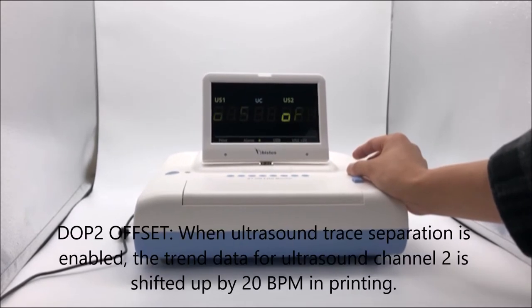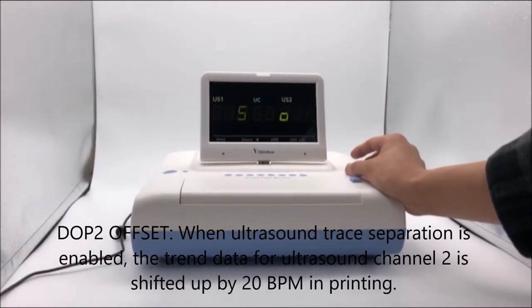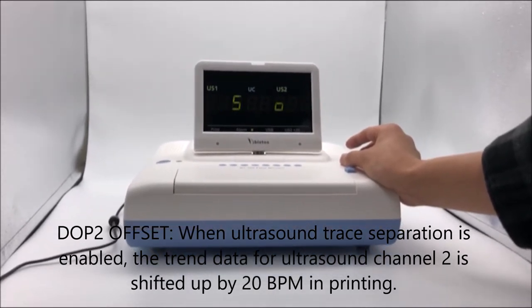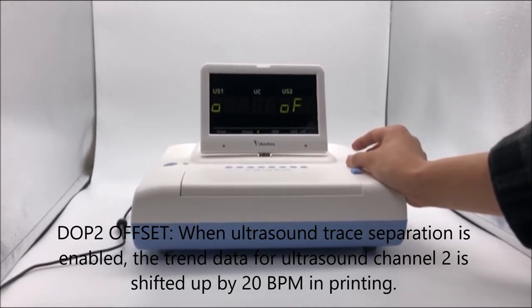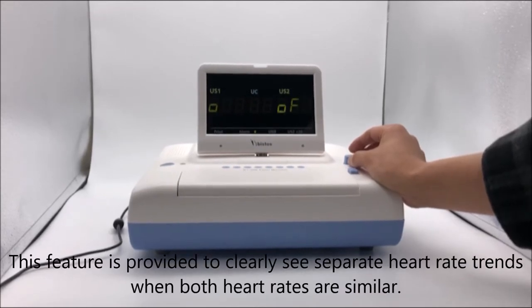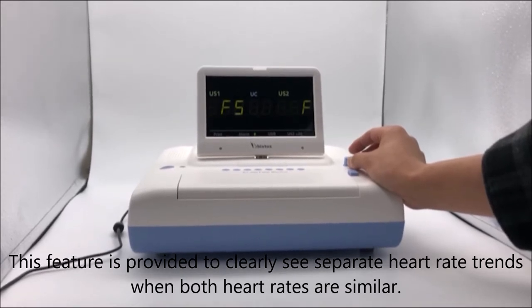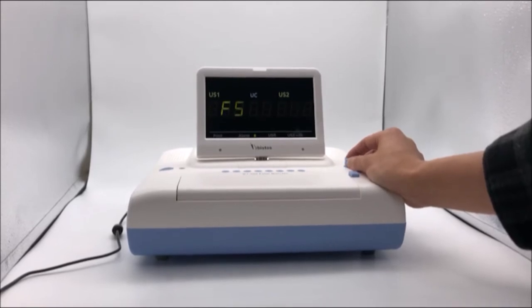Doppler Offset: when ultrasound trace separation is enabled, the trend data for ultrasound channel 2 is shifted up by 20 BPM during printing. This feature is provided to clearly see separate heart rate trends when both heart rates are similar.